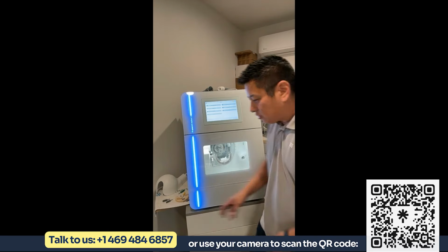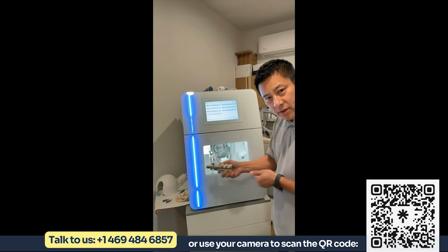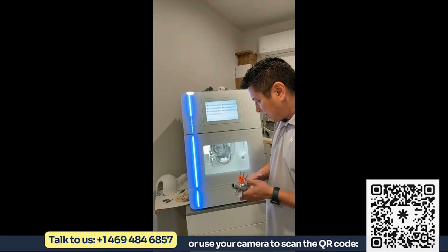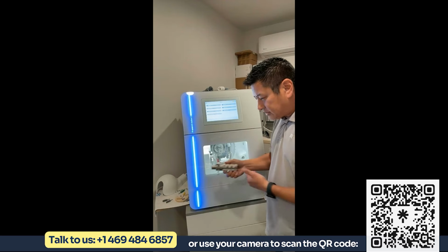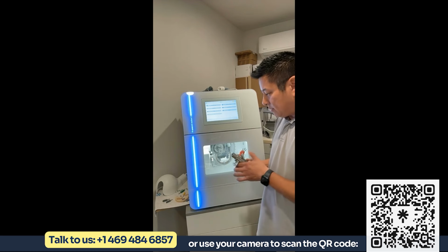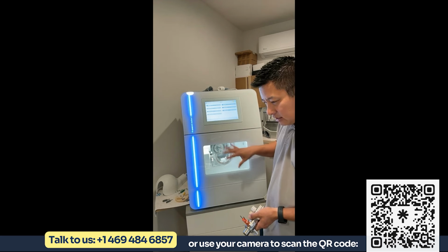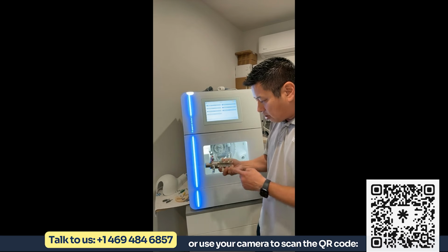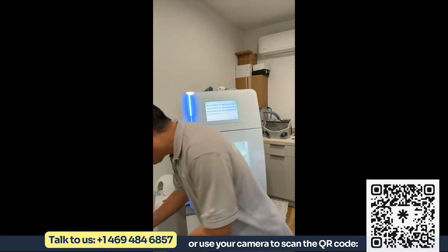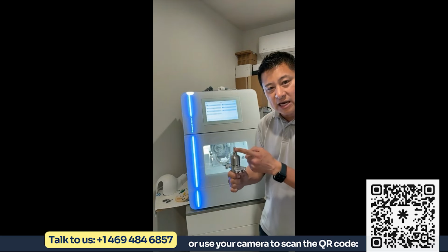So what I just did was I basically changed out these arms. These arms are interchangeable, which I think was kind of our claim to fame in these mills. Because these arms are interchangeable, that also makes the mills upgradable. What I mean by that is, if this mill can mill zirconia, PMMA pucks out of a C-clamp or a 98 millimeter holder, and you change the arm to mill glass ceramics, and you can mill 9 at a time, you can also change the arm out and you can mill a custom titanium abutment.